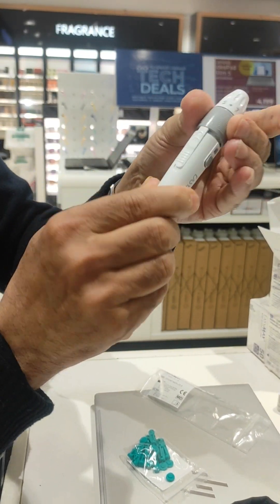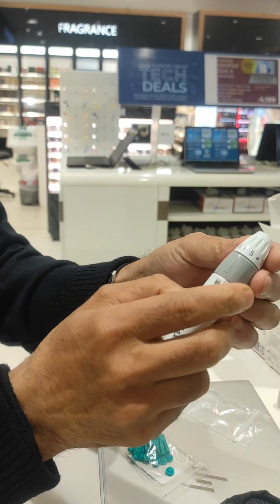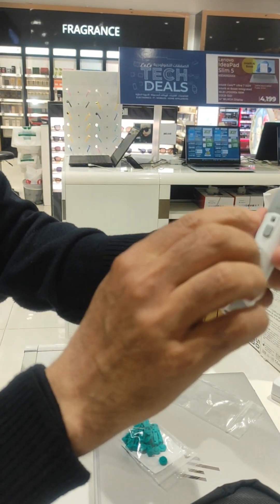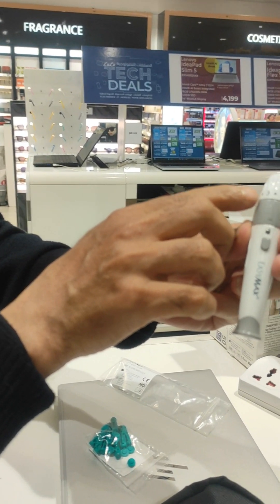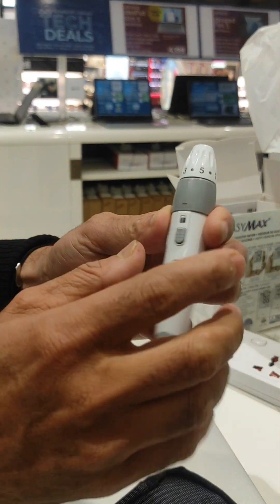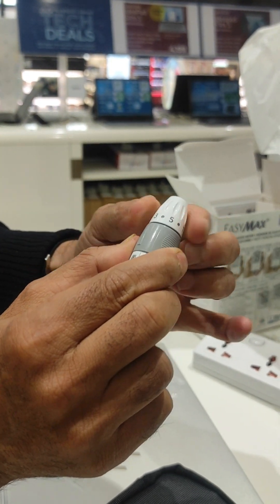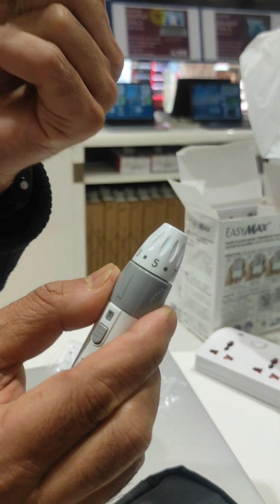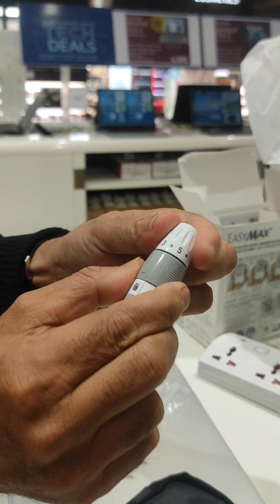And again close. This one is for adjustment — this is four, number four: one, two, three, four. Keep this one here. For a child, make it three. For you and me, even for ladies, just have a soft finger, use three; otherwise four while shaking.